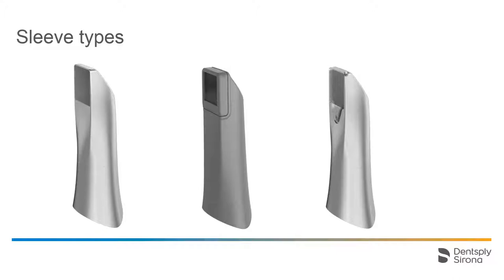For detailed information about the first two sleeves, please refer to our video tutorial entitled PrimeScan and the Acquisition Center, Cleaning and Disinfection Procedures. This tutorial focuses on the new autoclavable sleeve with disposable window.